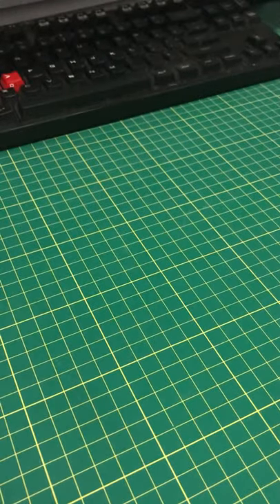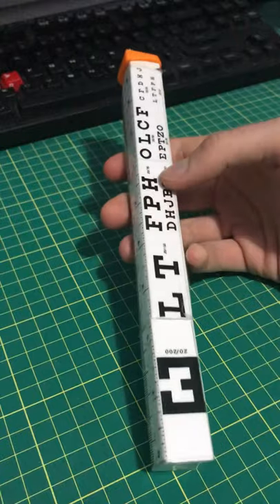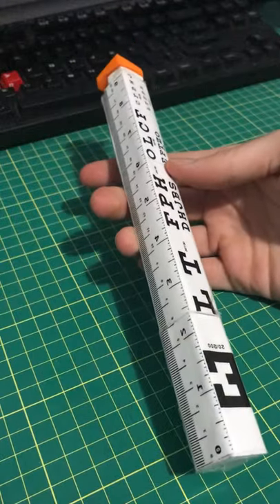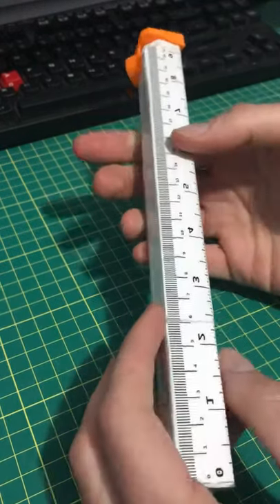So I thought: what would a medical multi-tool look like? I thought about it, and then I designed one. Here's a 3D-printed medical multi-tool. I call it the JVP — it stands for Just Versatile Pen. Let's take a look at it.